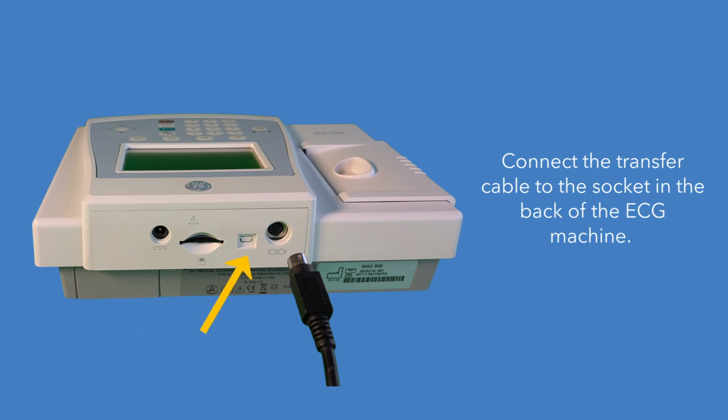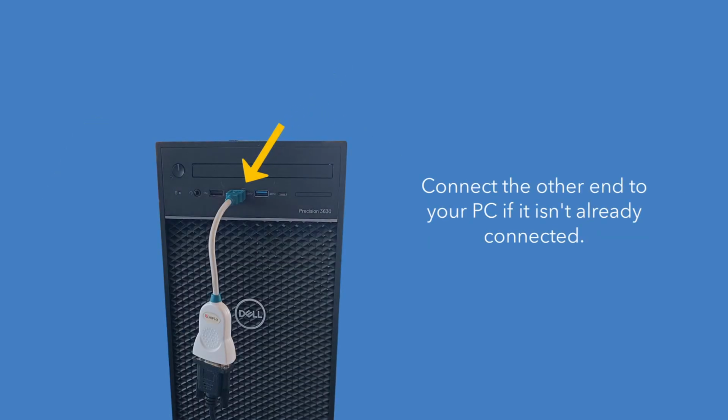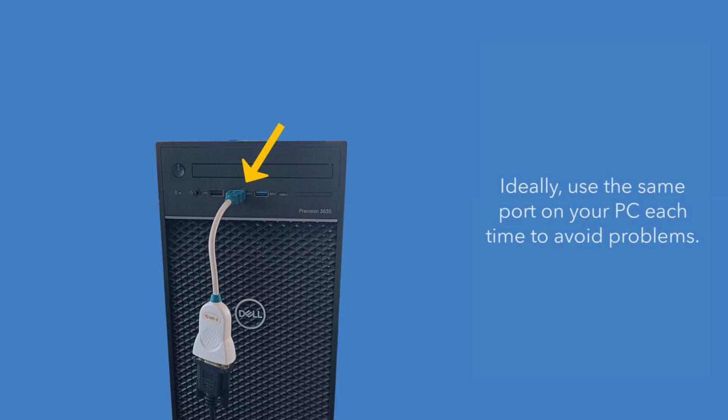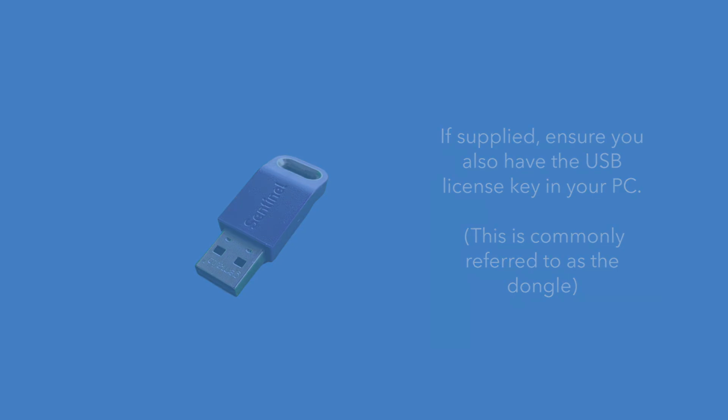Connect the transfer cable to the socket in the back of the ECG machine. Connect the other end to your PC if it isn't already connected. Ideally use the same port on your PC each time to avoid problems. If supplied, ensure you also have the USB license key in your PC. This is commonly referred to as the dongle.